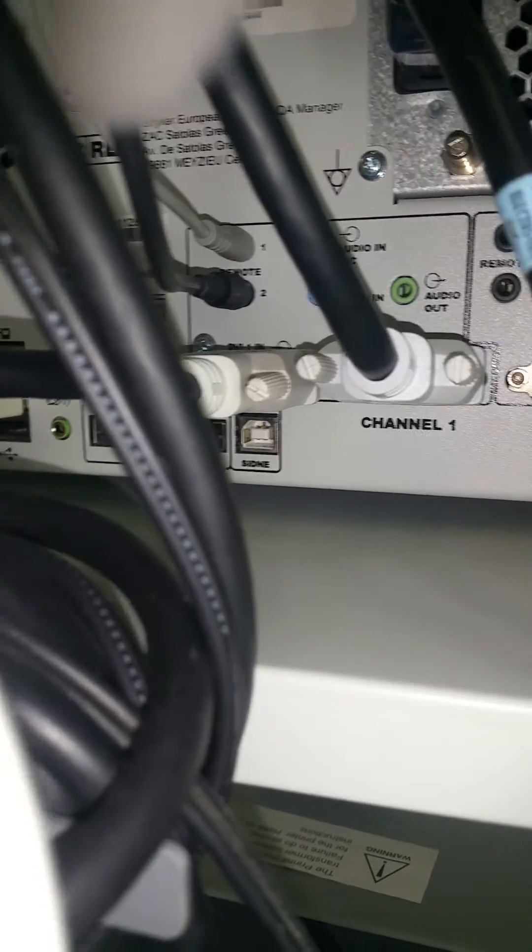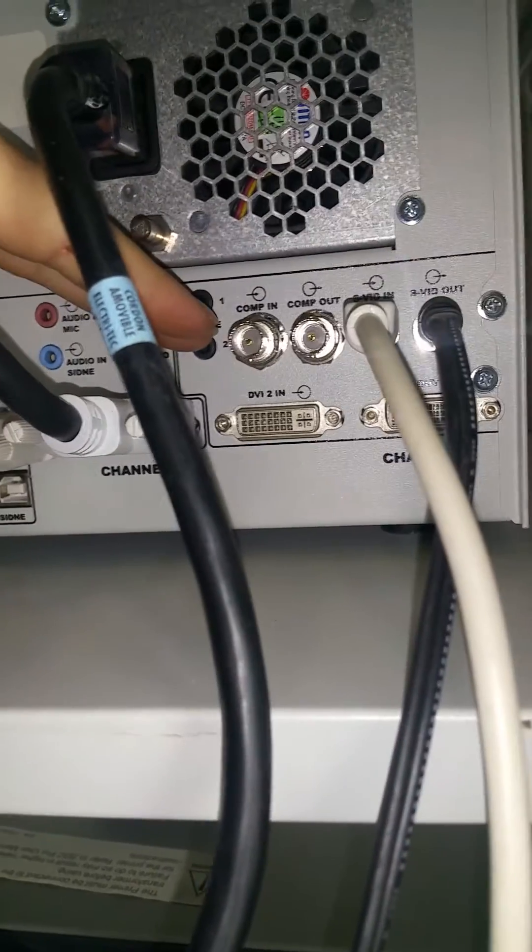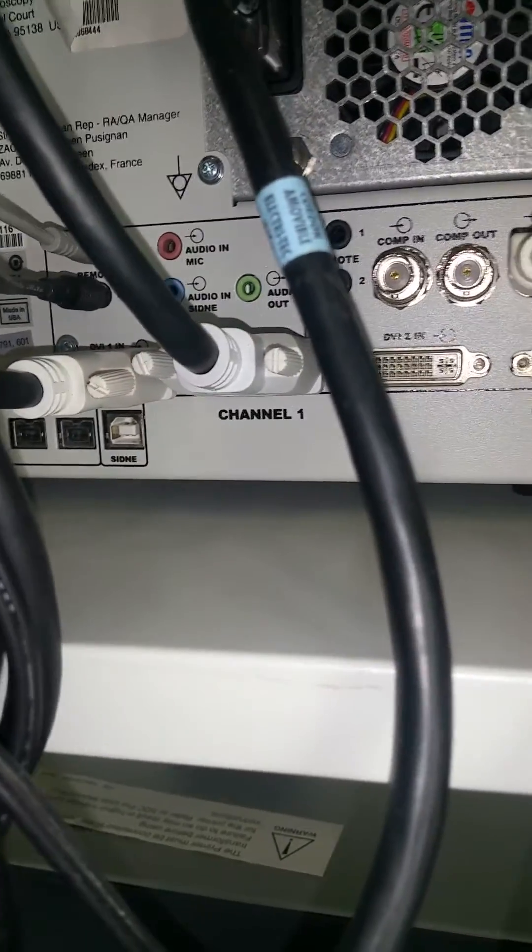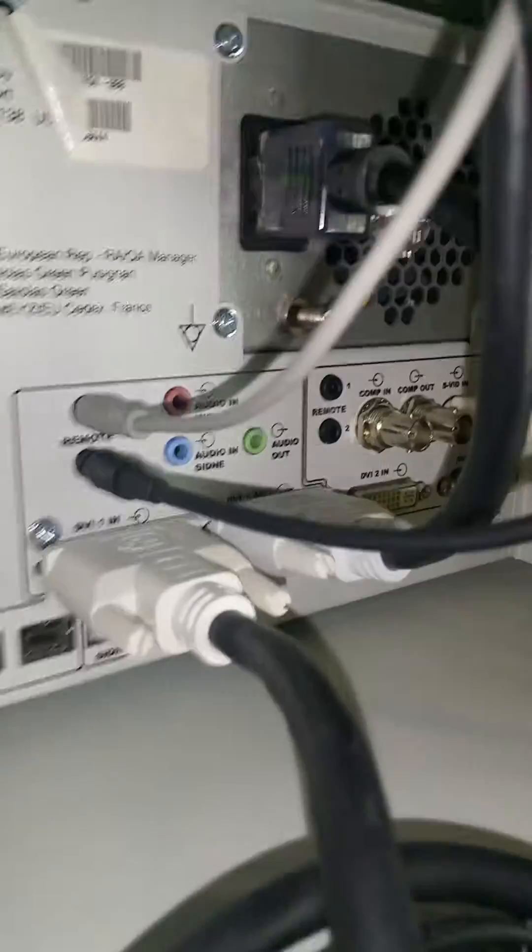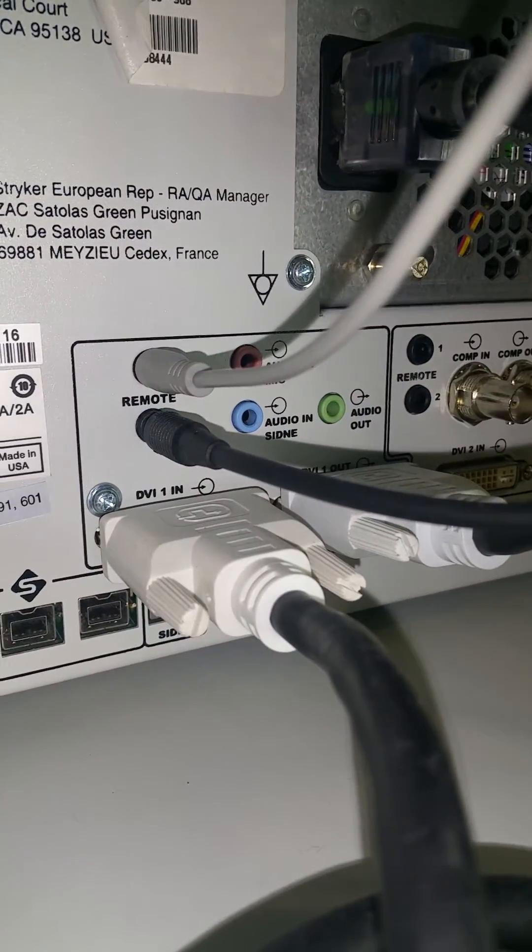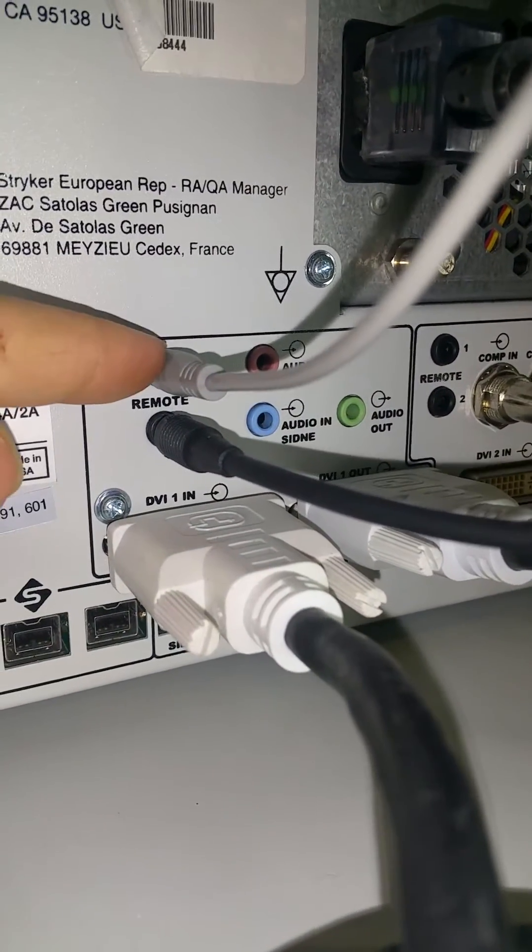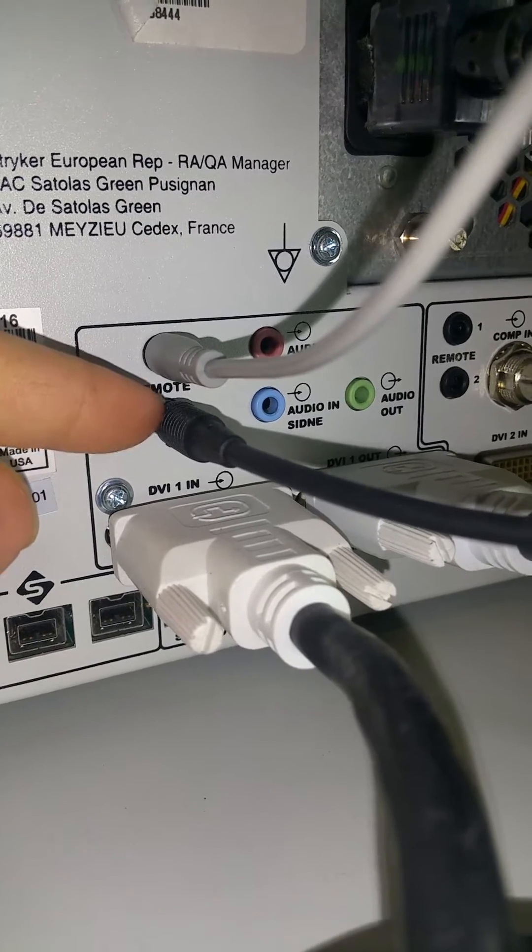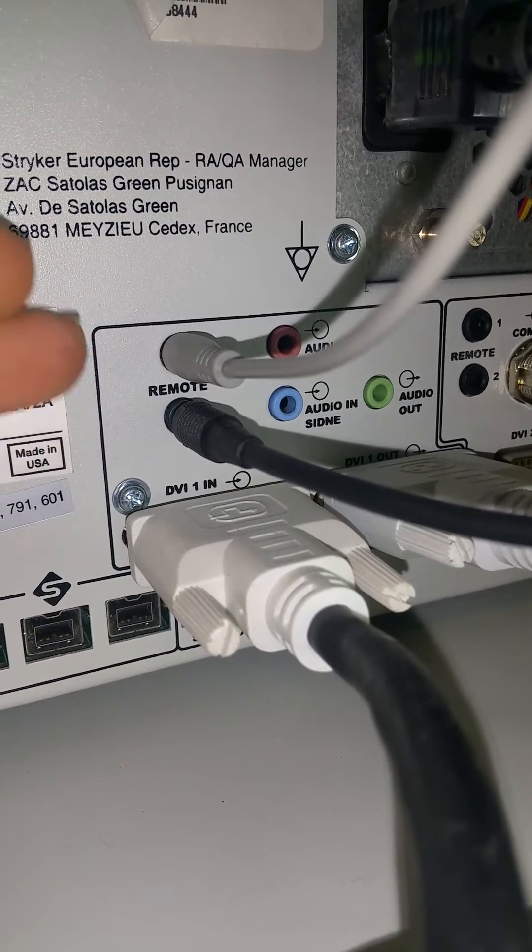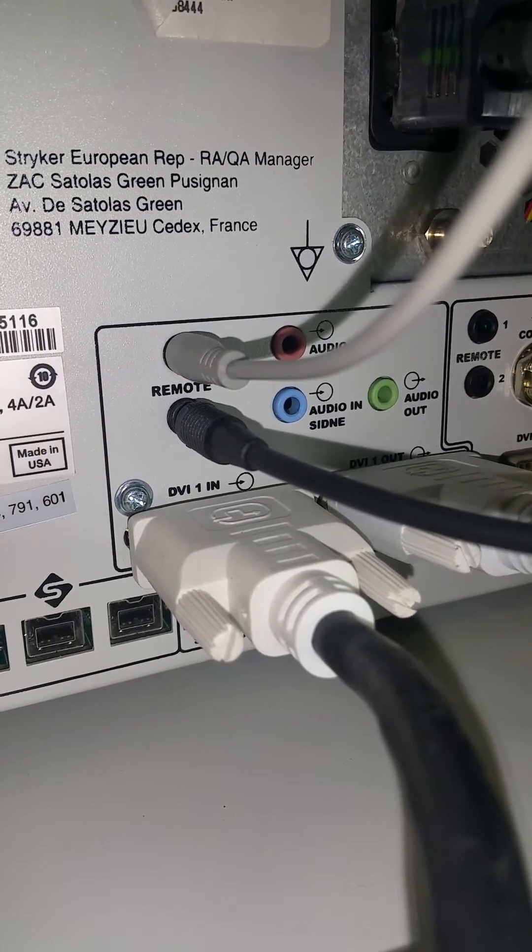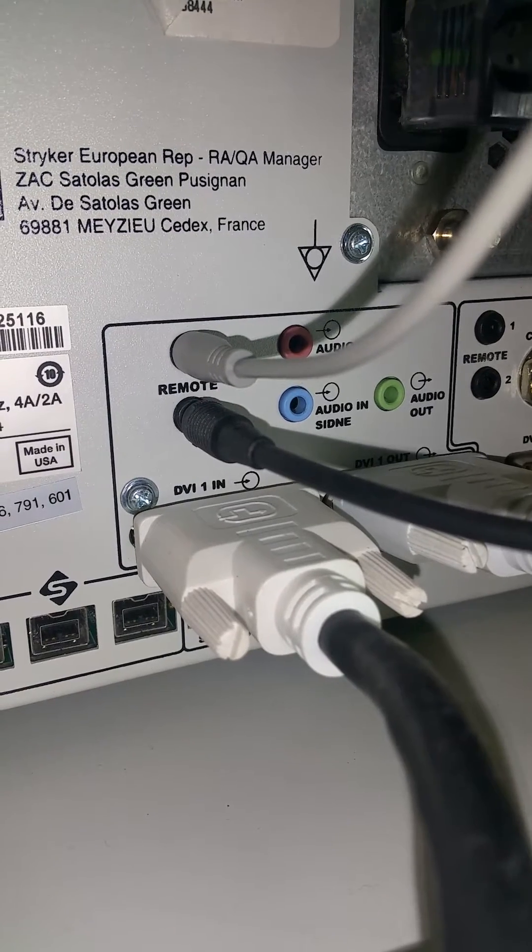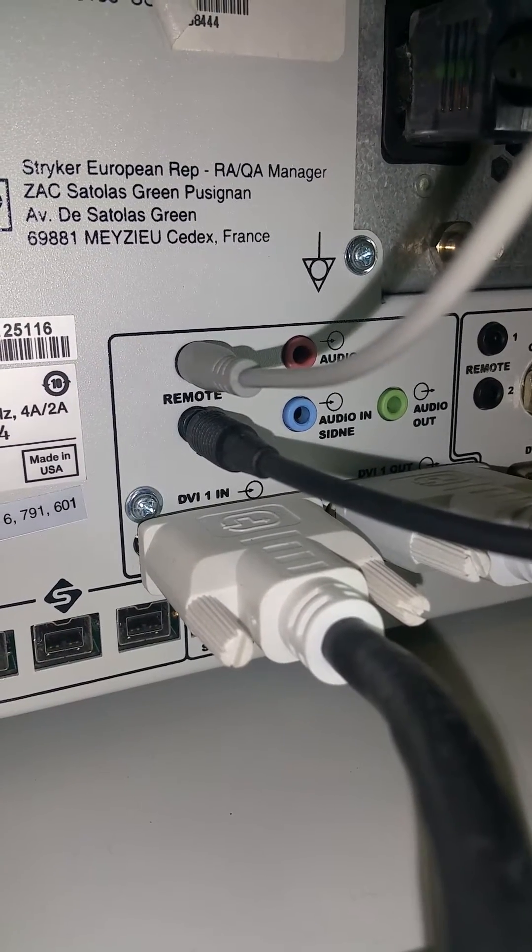If you had a second camera box, then you could be able to use channel two, but that's not what we're going to get into. So anyway, as I was stating before on the camera box itself, it has a remote one and a remote two cable coming from it. And you want to make sure I have these indicated with two different colors just to make it that much easier on myself.